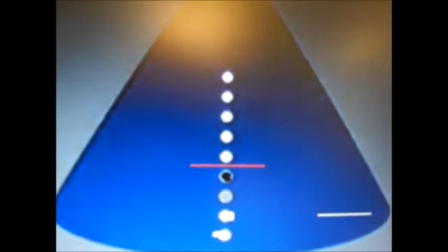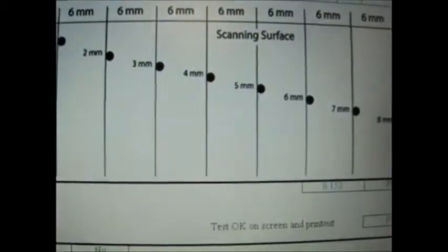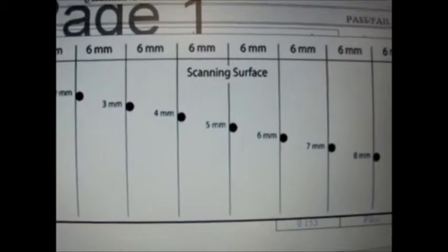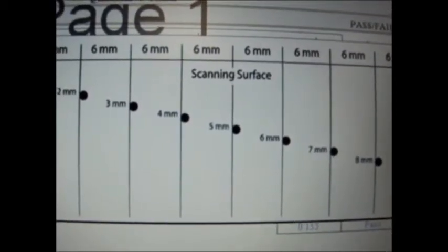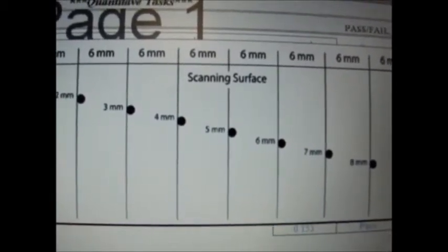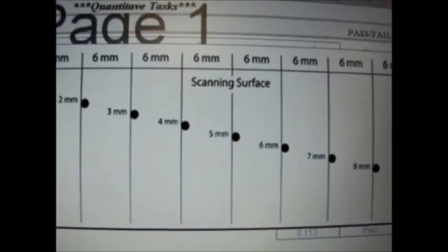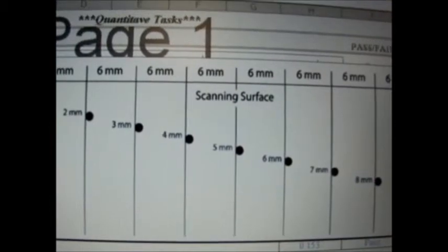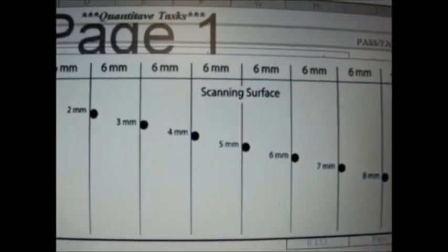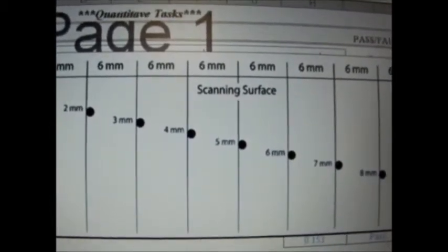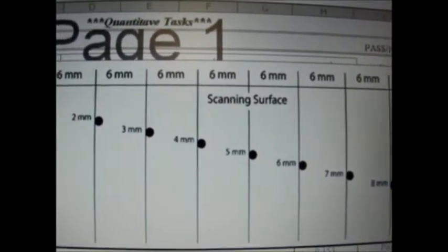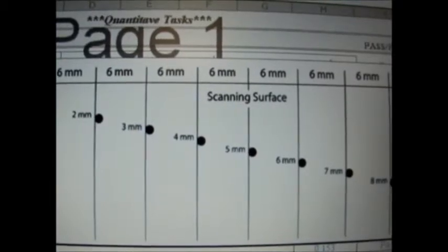The next test is the near field or dead zone. The dead zone corresponds to the initial time where ringing signals, signals caused by continued vibration of a transducer, are not detected. To measure near field, start at the first reflector and count how many total reflectors you see. Next, subtract the total number of reflectors by the actual number of reflectors seen.